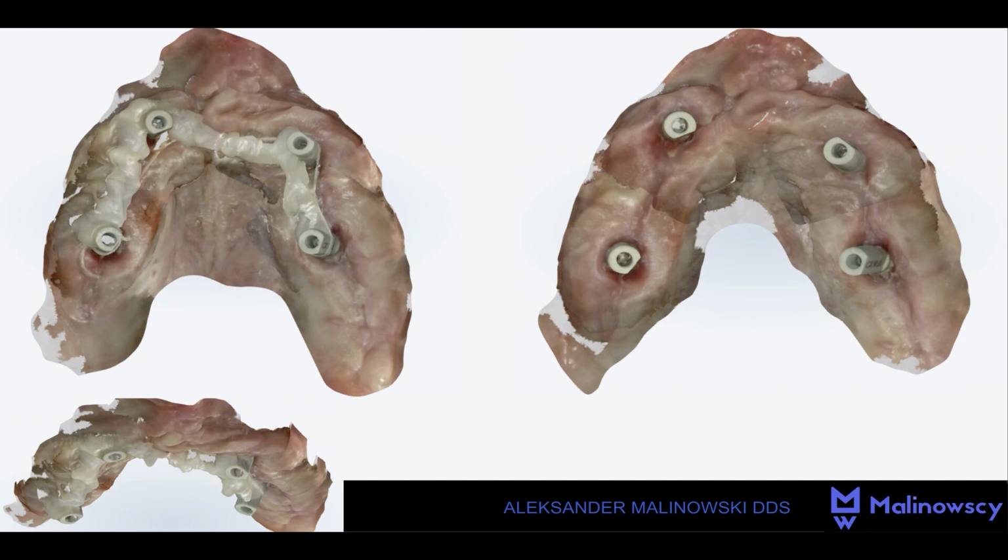In my opinion, to collect accurate data in dental procedures, neither expensive devices like the PIC camera, nor appliances like smart flag scan bodies are needed. Just a tray and resin like Structur or Luxatemp or something like that.